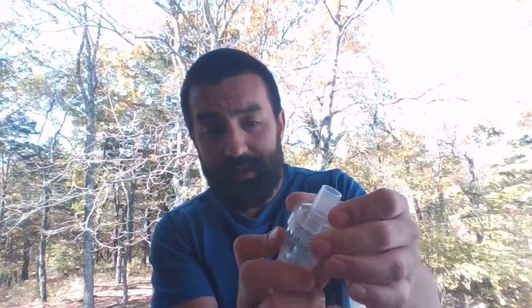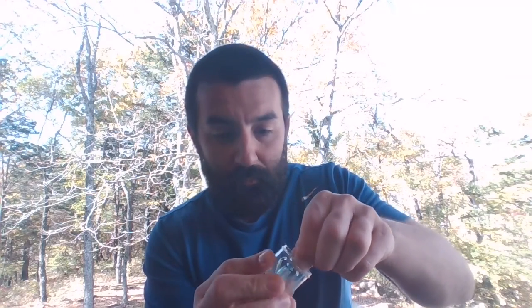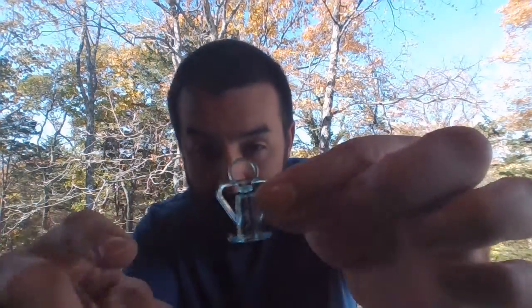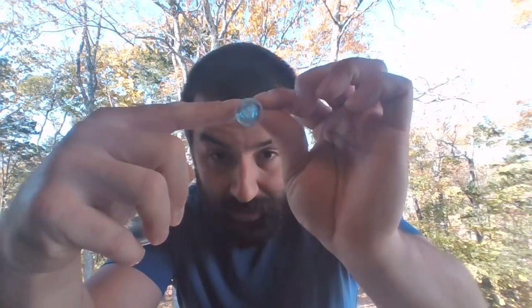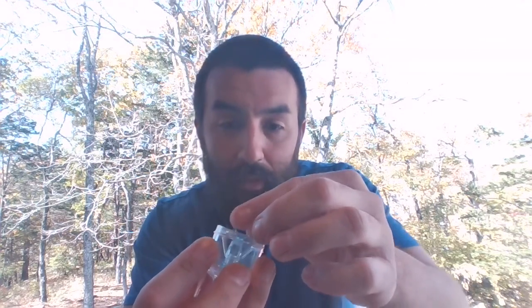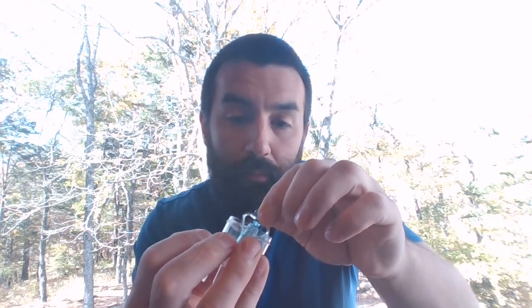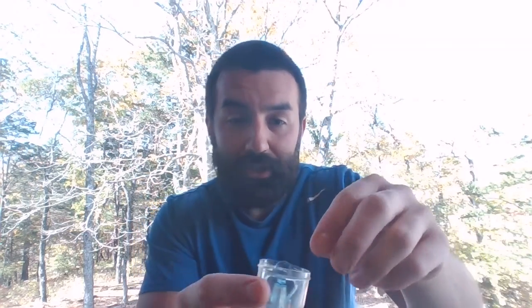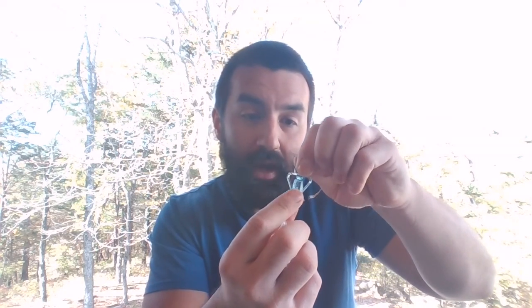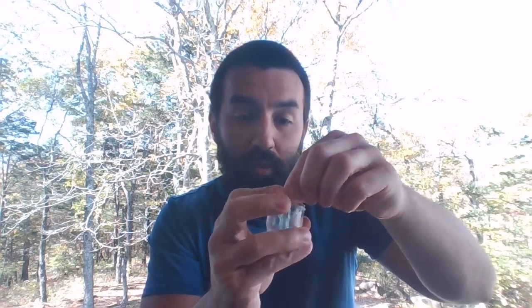All of these usually have some means of being able to twist the top off. Okay, this little plastic piece is very, very important. So if you look, there's our little jet there. You can see that little nozzle that things go through on the back side. There's a little pinhole right there as well. It comes through that opening, all right, and we end up with this lateral drop, okay? What we're doing is pulling some of that medicine up and into this, and it gets pulled into that gas stream, okay? And that's how we're creating an aerosol. So that little lateral pressure drop is effectively pulling medicine up through this cup and is responsible for creating our aerosol.